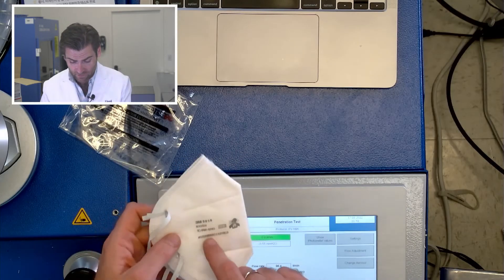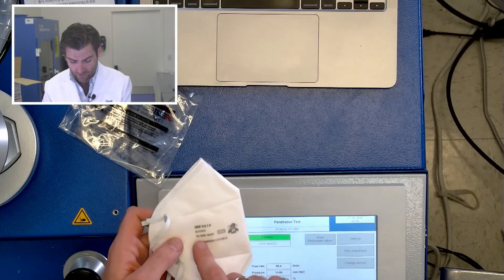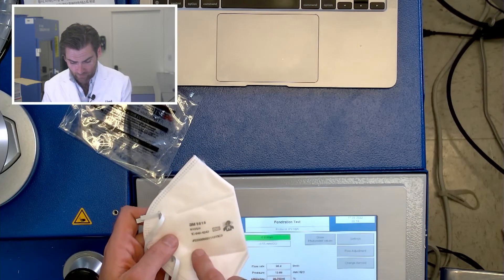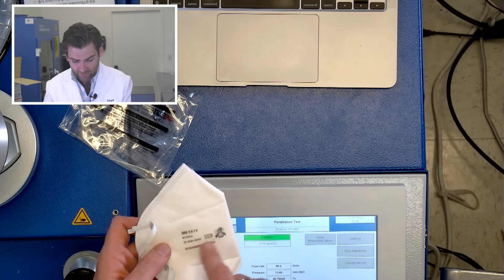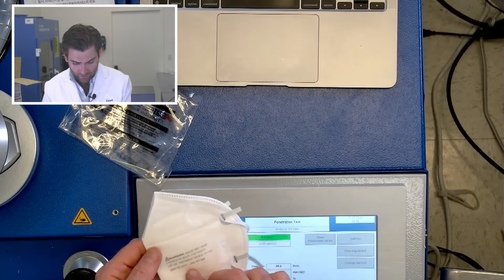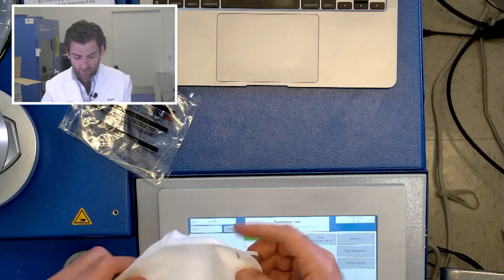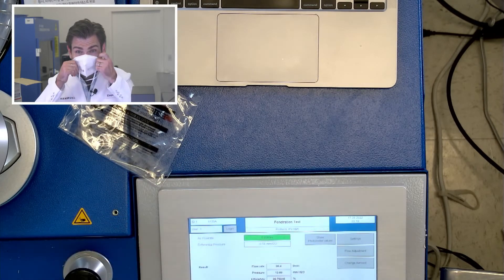NIOSH, their manufacturers in line. Look for the TC number, look it up on their website. They've got the lot number right on there. It's all really good. Never seen this mask. It smells like the inside of a furniture store.